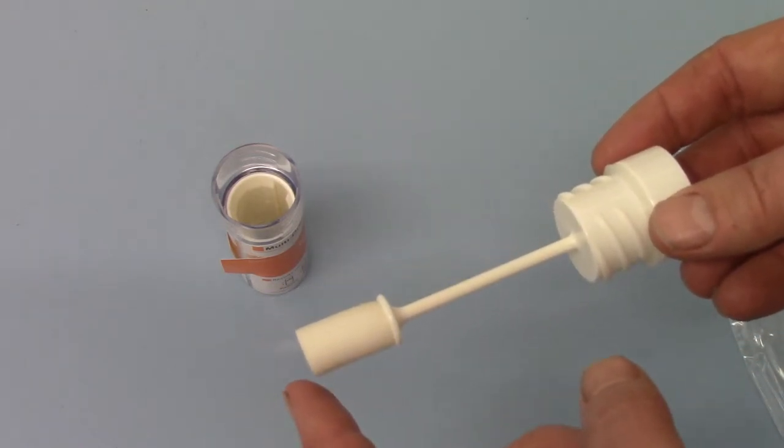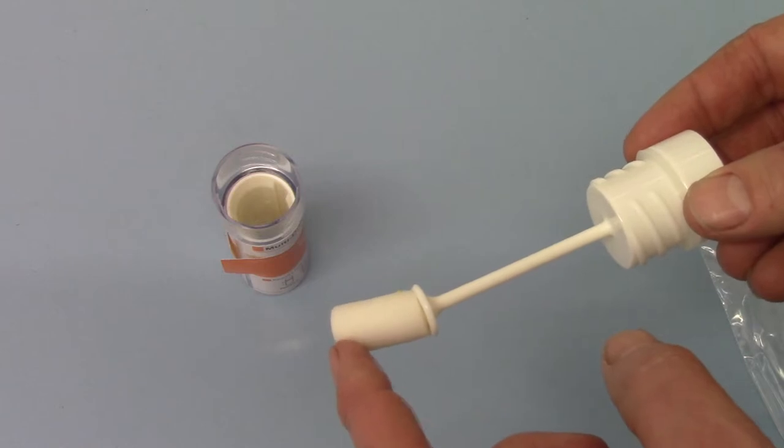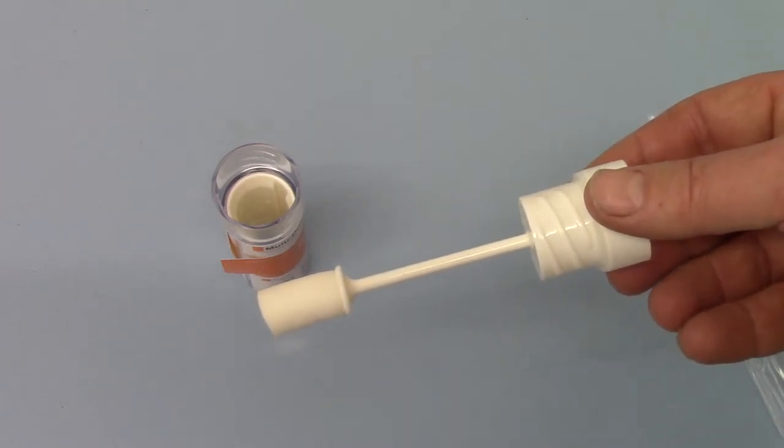Once that has occurred, the swab itself is completely soft and squishy, and you can feel the central core if you bite against it with your teeth.